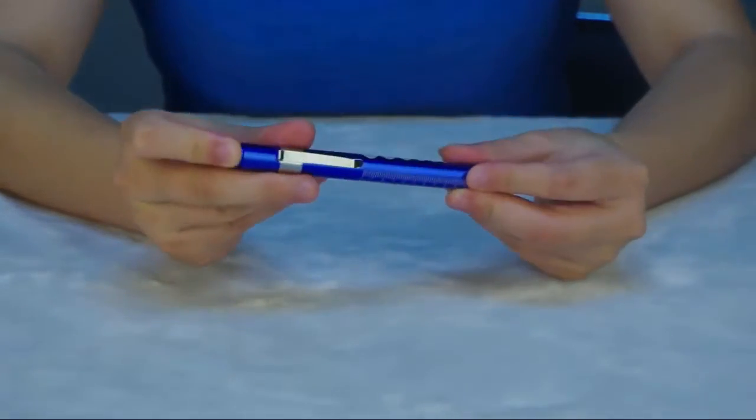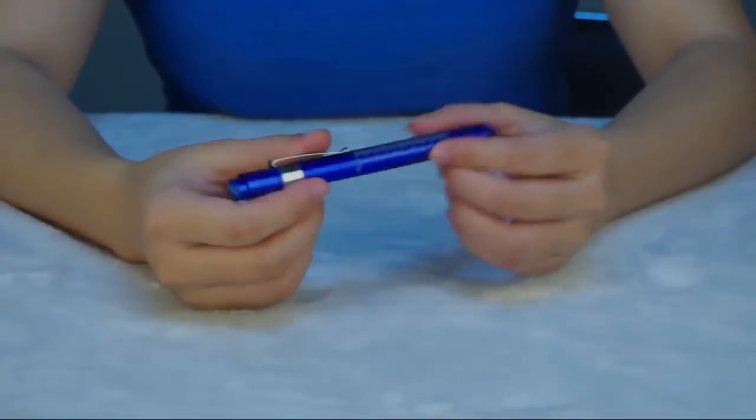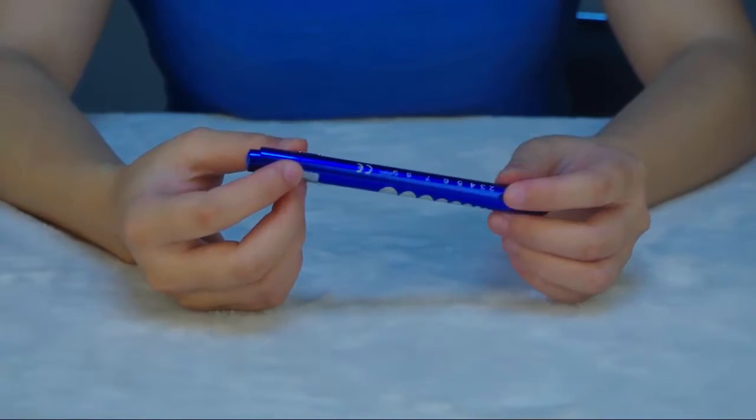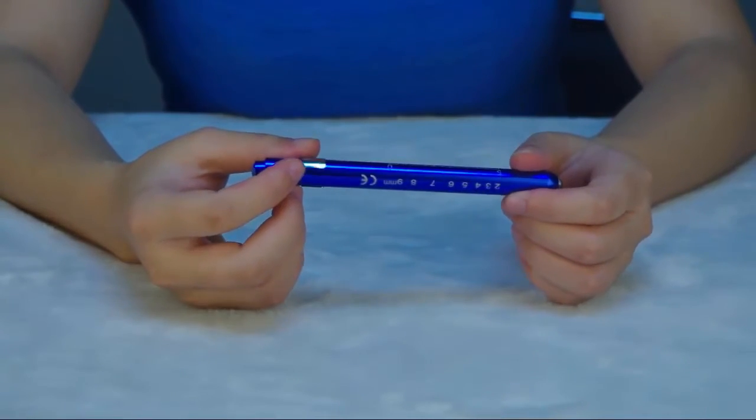Are you looking for this kind of pen light for your easy life? If yes, just take action. Thank you for your time watching the video. Goodbye.